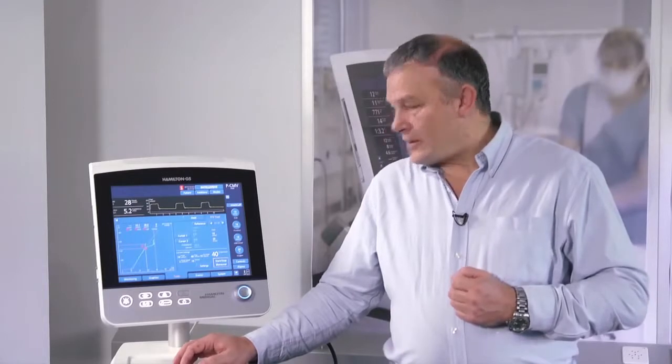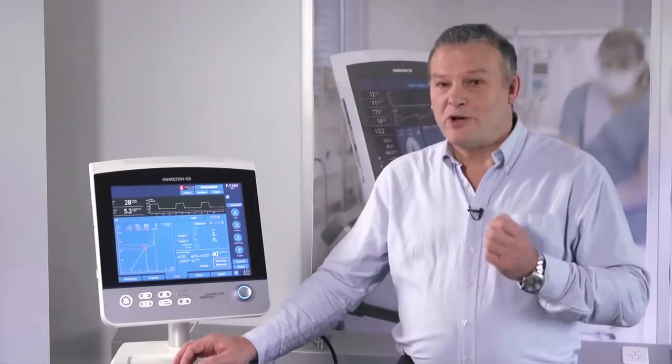One thing that is very important and we often forget: during this manoeuvre it's important to inflate the ET cuff to well above the peak pressure.